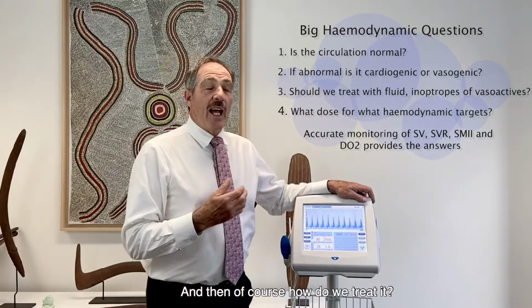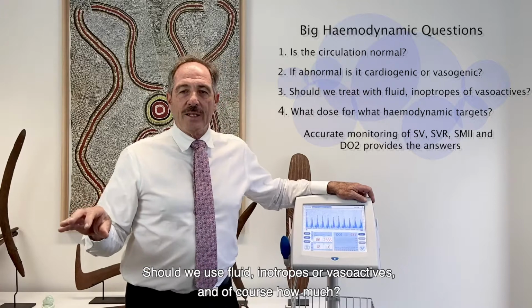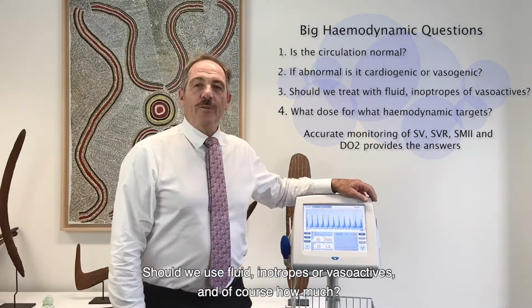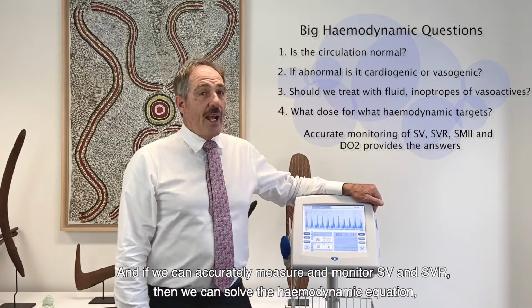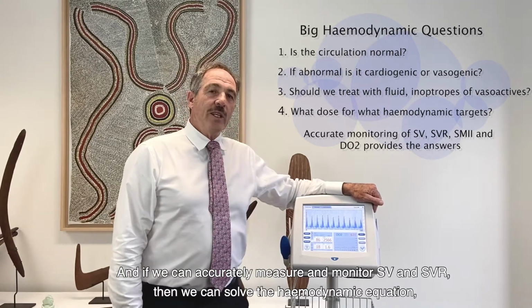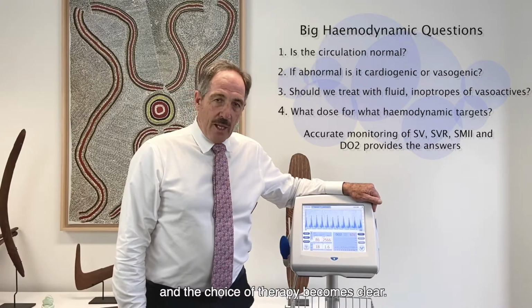And then, of course, how do we treat it? Should we treat it with fluid, inotropes, or vasoactives? And of course, how much? And if we can accurately measure and monitor systemic vascular resistance and stroke volume, then we can solve the haemodynamic equation and the choice of therapy becomes clear.